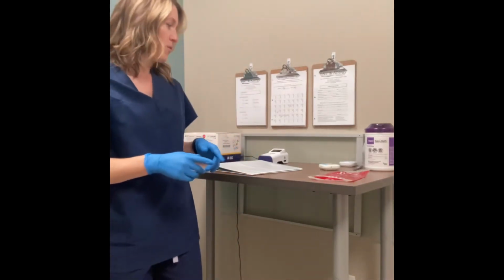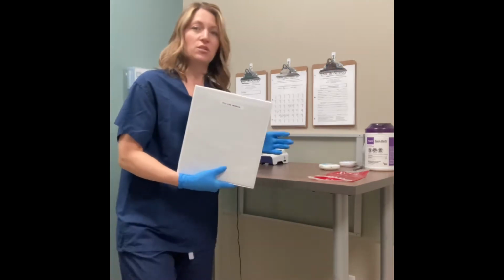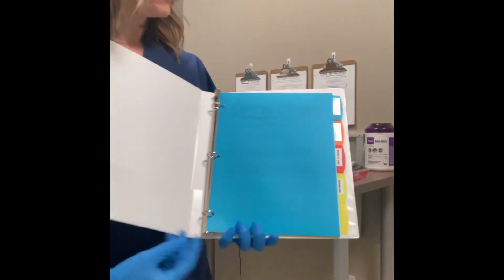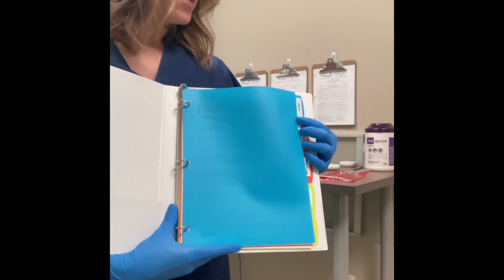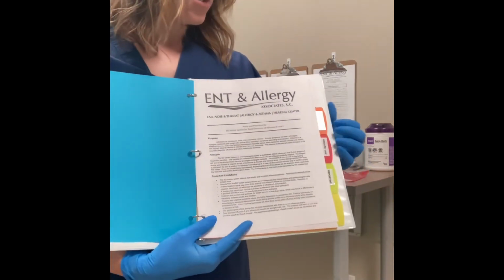Good morning. Today we're going to be doing the influenza lab testing. So I want you to start by going through the influenza lab manual. You'll find that in the lab closet. Again, we start with going through the policy. That'll tell you exactly how to do it step by step, the proper samples, when to reject a sample, quality control, and if there's any dangers or hazards.